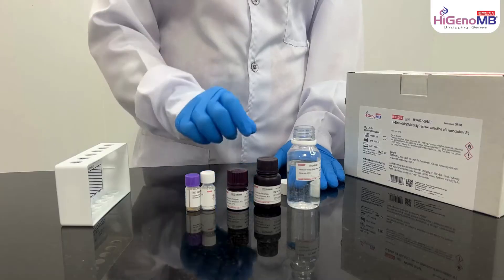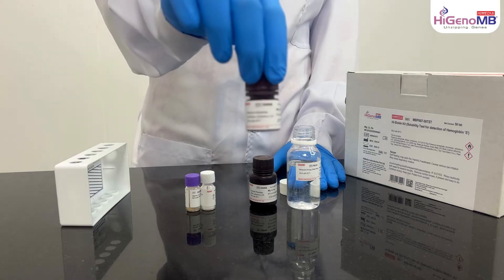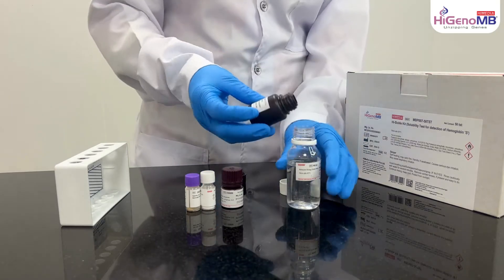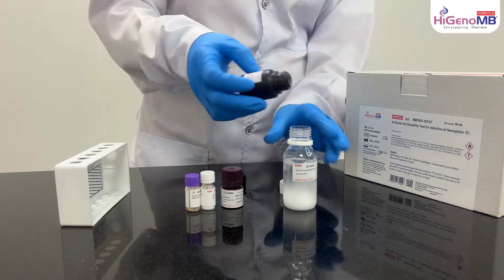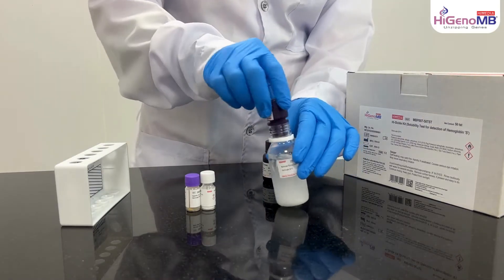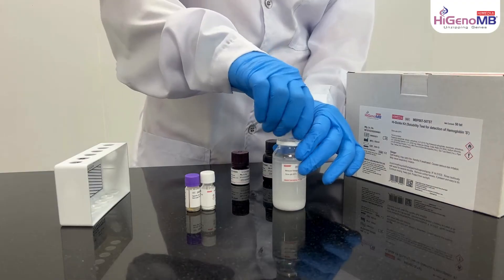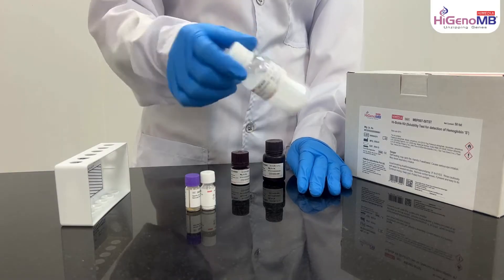To make the reagent, add DS0098 (potassium phosphate dibasic) and DS0099 (potassium phosphate monobasic) to the bottle of water, which is labeled as ML024. Shake the bottle so that the solution becomes clear.